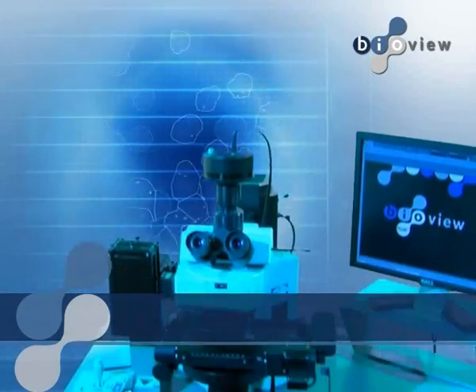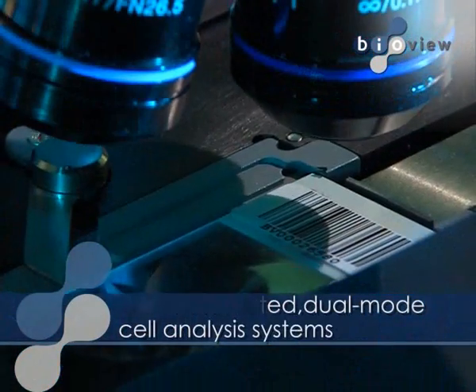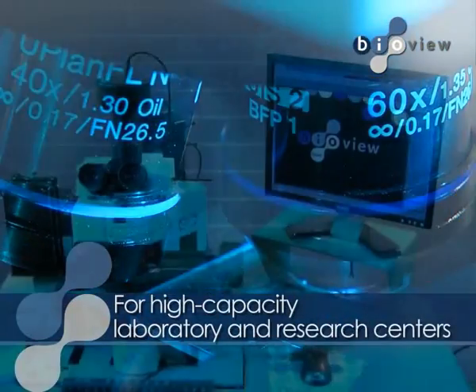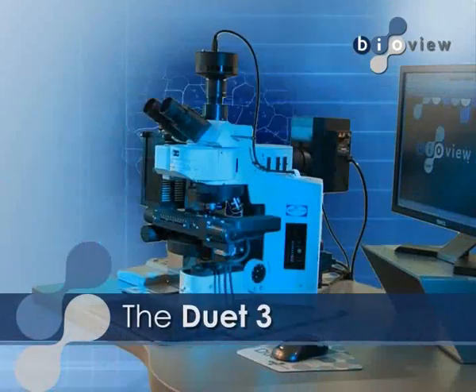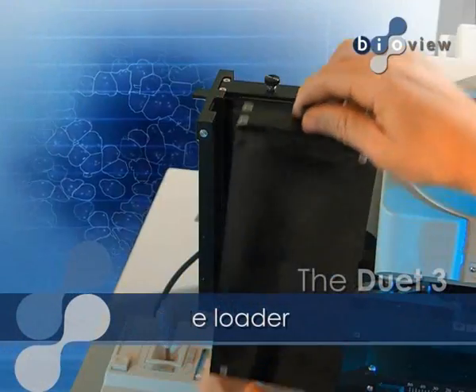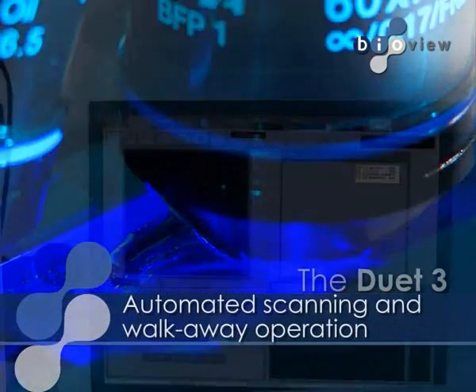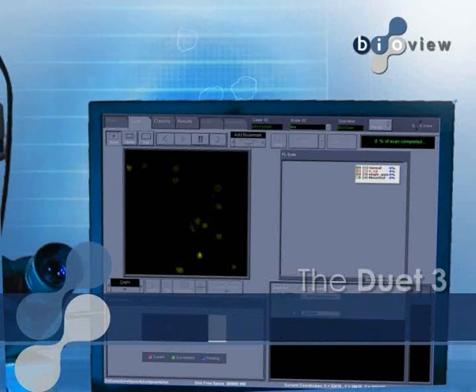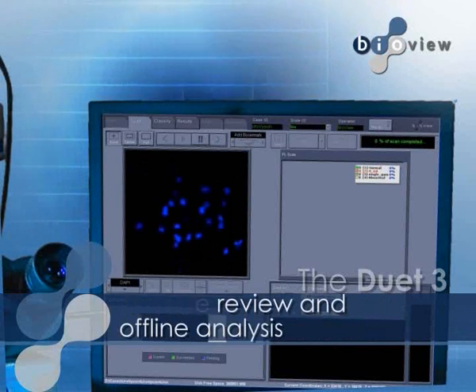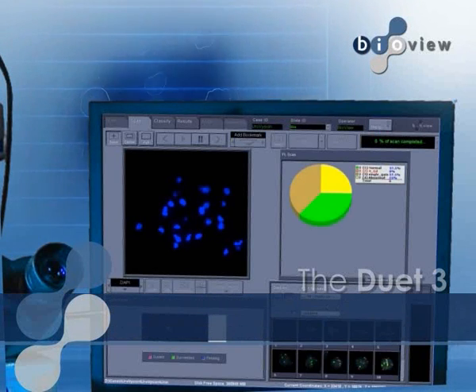Introducing BioView's fully automated, dual-mode cell analysis systems for laboratory and research centers, the DUET-3. With automatic slide loading, scanning, and walk-away operation, BioView's advanced imaging and analysis system ensures increased productivity in the laboratory and a higher standard of patient care.